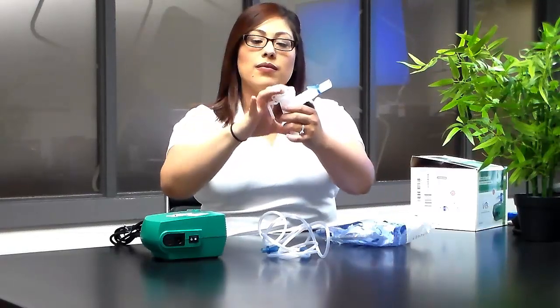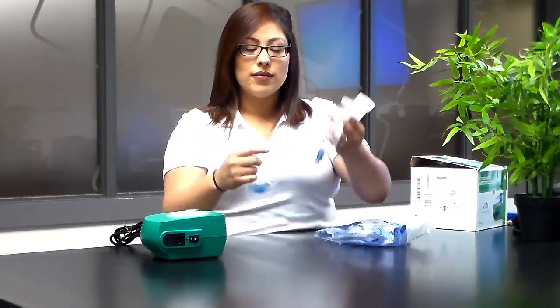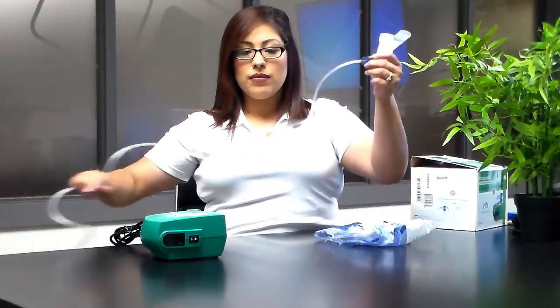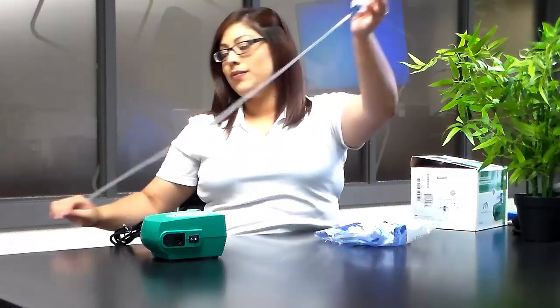You will put the cap on the well and attach one side of the tubing to the bottom of the well. Push firmly for a good connection.